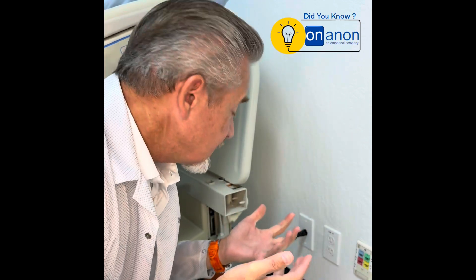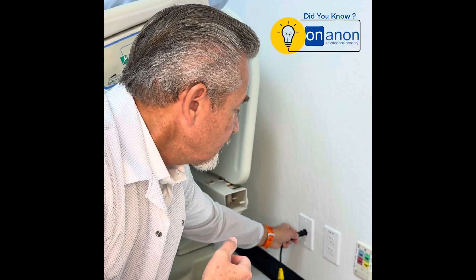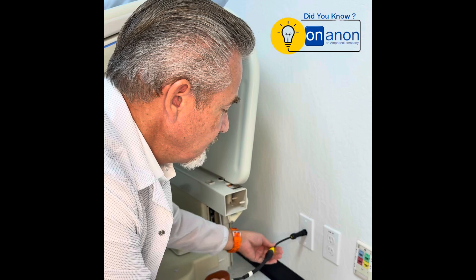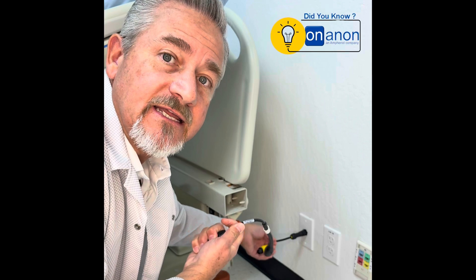Come on down to the floor and let me show you a problem that MagConnect is a practical solution to solve. More and more OEMs are using locking connectors for hospital beds. The problem with that is when a physician or nurse pulls the hospital bed — which is on wheels — away and they don't remember to come down here and unplug this, they create damage to the outlet itself.